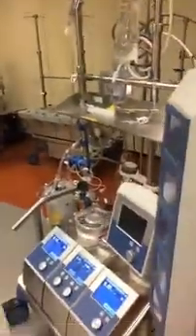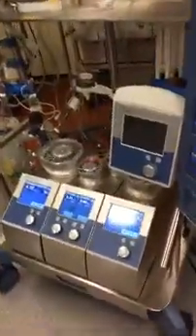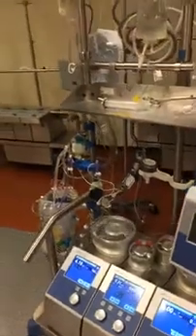I could start off by maybe showing you how the heart-lung machine works. This is a piece of equipment that about 90% of the time we spend in the hospital is working with the heart-lung machine itself, so the students have to be proficient in its use. There's really nobody else in the hospital that could operate this machine with the adequate amount of safety.